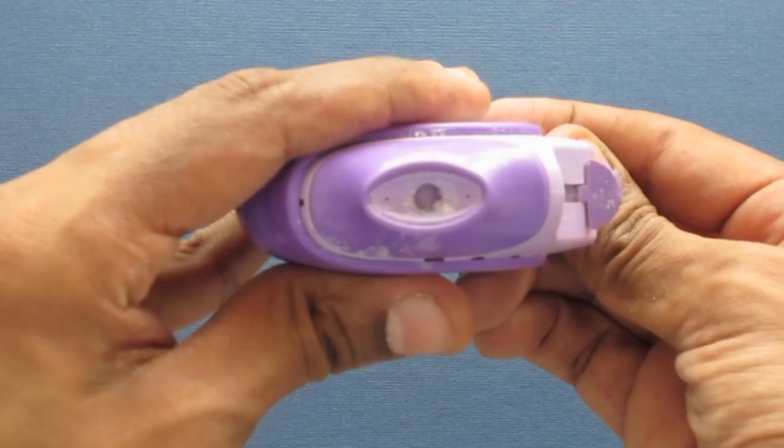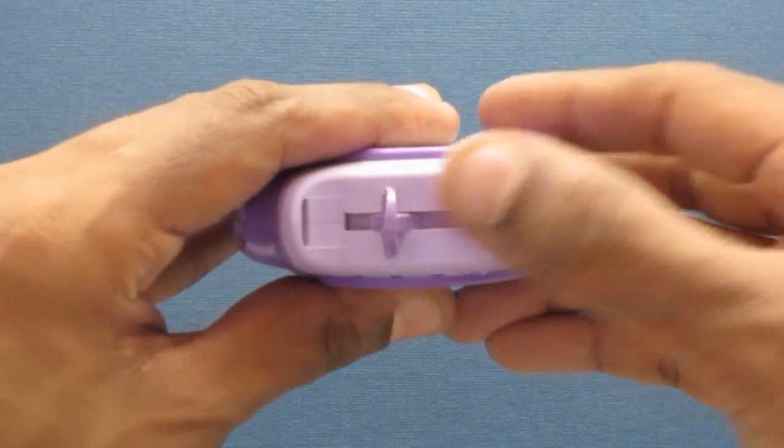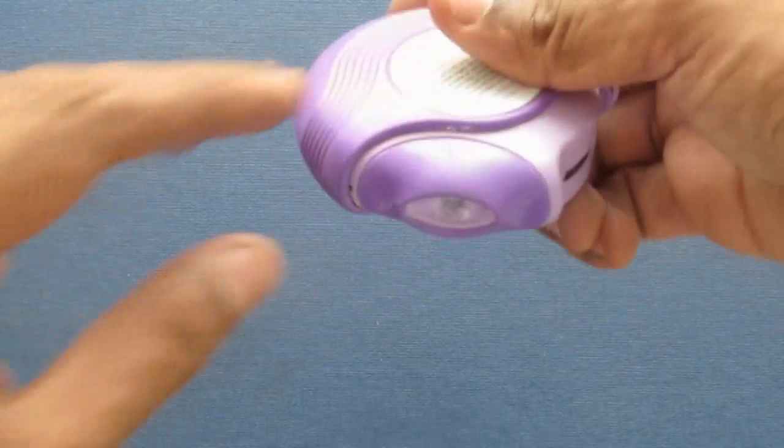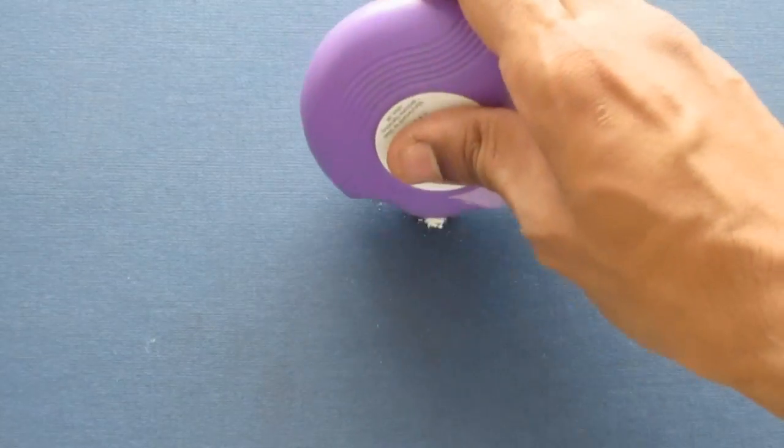Accuhaler adalah inhaler yang mengandungi ubat di dalam bentuk serbuk di mana MDI mengandungi ubat dalam bentuk gas. Anda perlu tarik nafas yang dalam untuk mengeluarkan ubat tersebut.